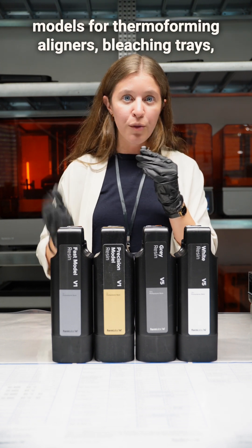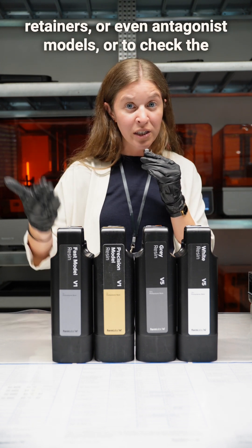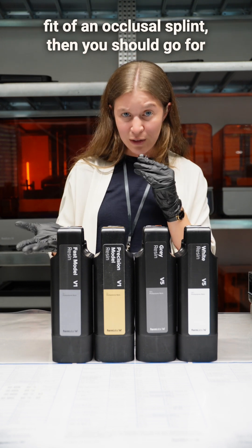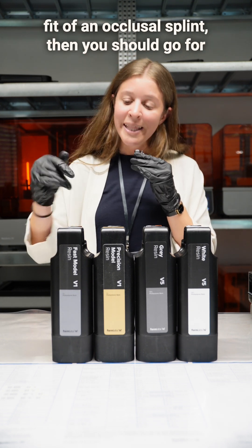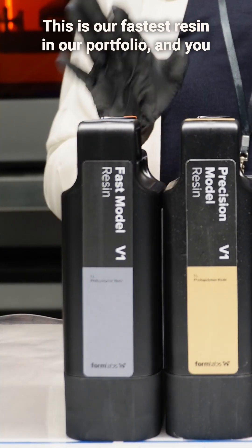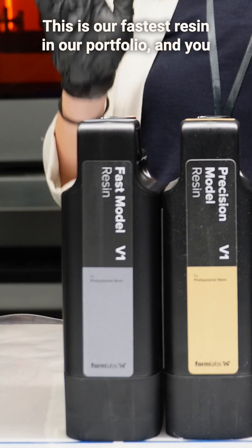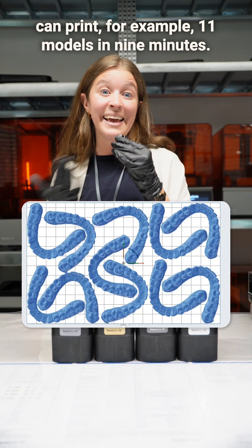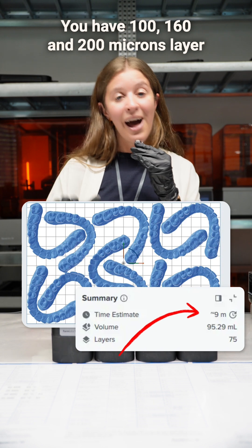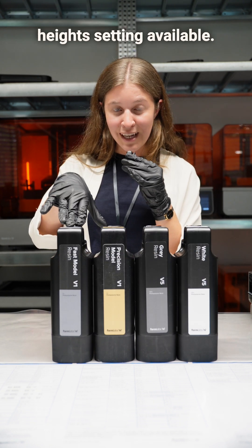If you want to print the fastest models — for example, models for thermoforming aligners, bleaching trays, retainers, antagonist models, or to check the fit of an occlusal splint — then you should go for a fast model resin. These are the fastest resins in our portfolio, and you can print 11 models in nine minutes. You have 100, 160, and 200 micron layer height settings available.